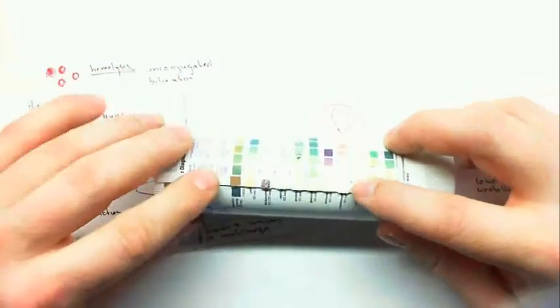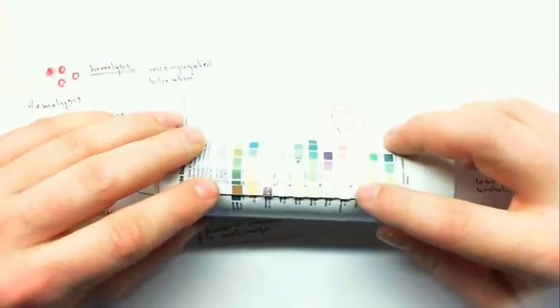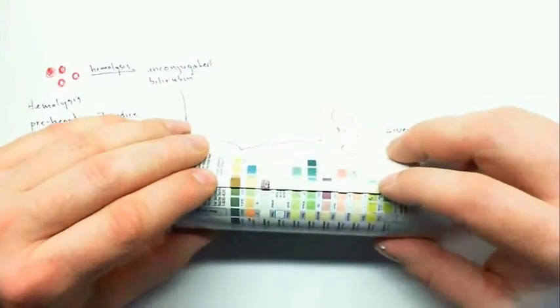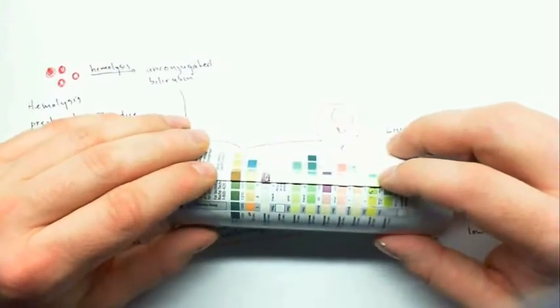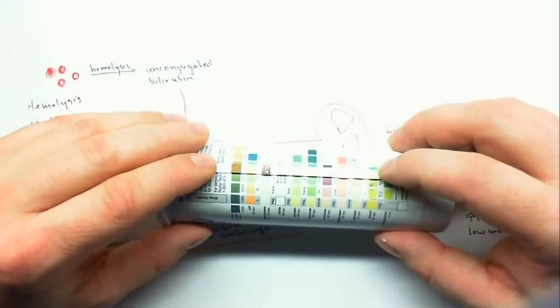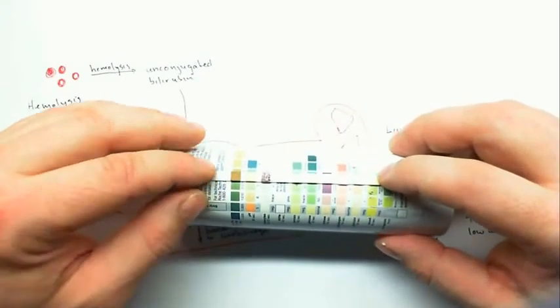In this one, I'm trying to indicate dehydration, so there's a really high specific gravity. There's also leukocytes present, and that could indicate any kind of infection that's causing diarrhea or throwing up. So it's causing dehydration, and there's clearly also an infection.